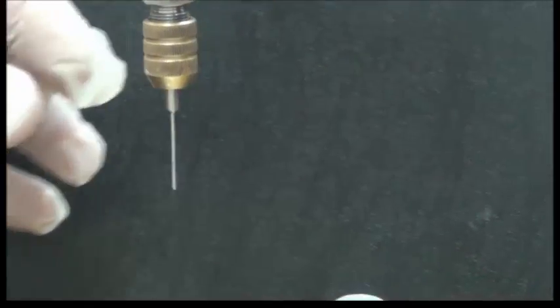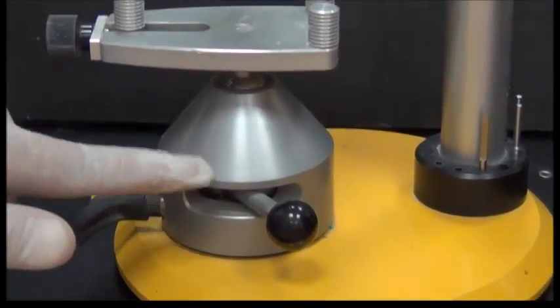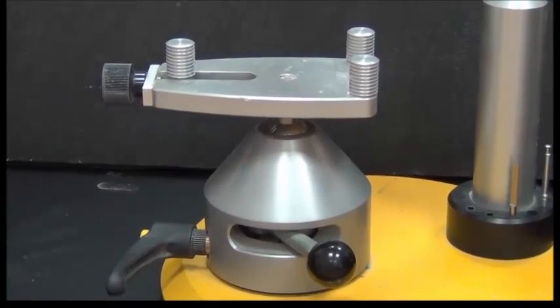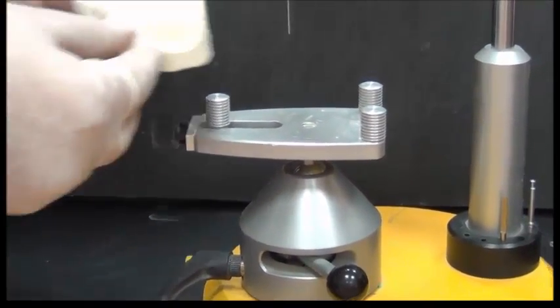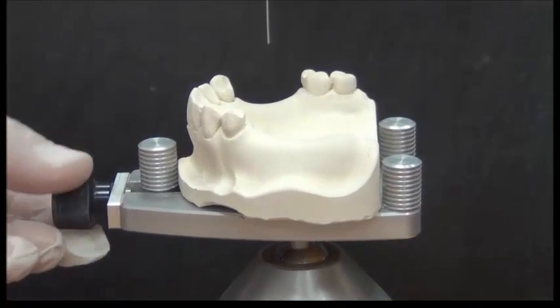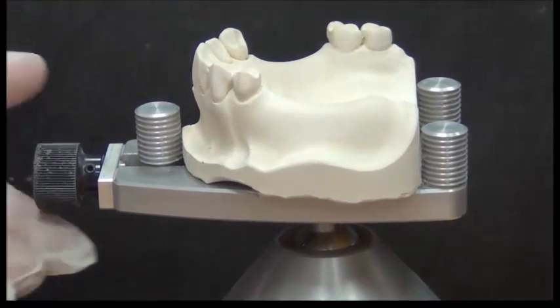But let's go back to the base, and on the other side it holds another structure called the table. You can see the surveyor table. On the surveyor table, we usually place our casts. So suppose this is a cast I'll be surveying. I'll be putting it on this table and then fixing it with the screw until these clamps hold it into location.